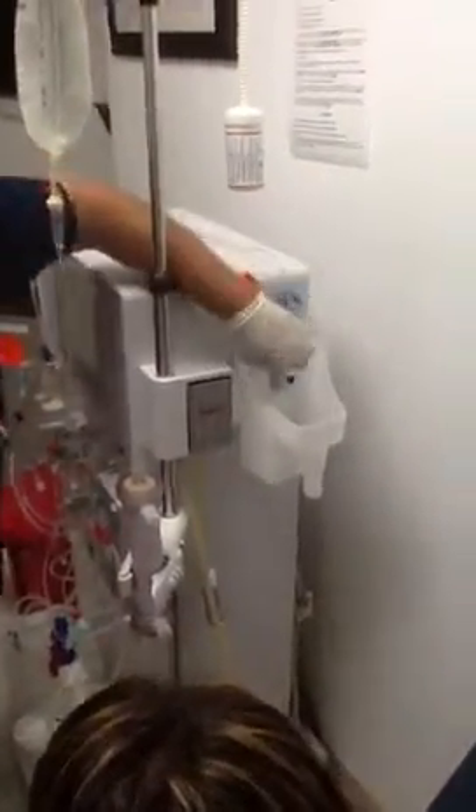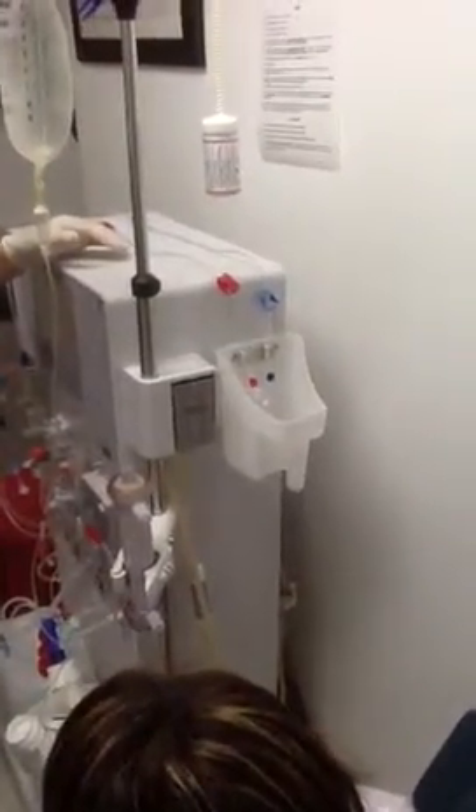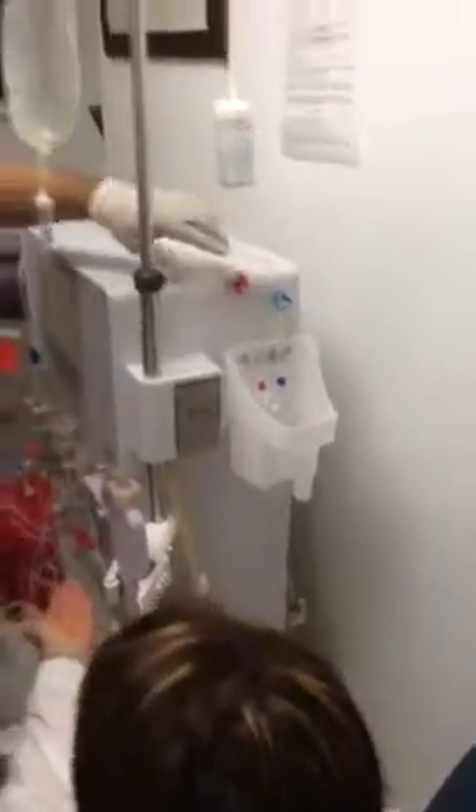It'll need two of those little protectors and recirculators on each one when it's brand new — it's to keep everything sterile. Once you see the saline coming out of the arterial line, clamp it. That's one.